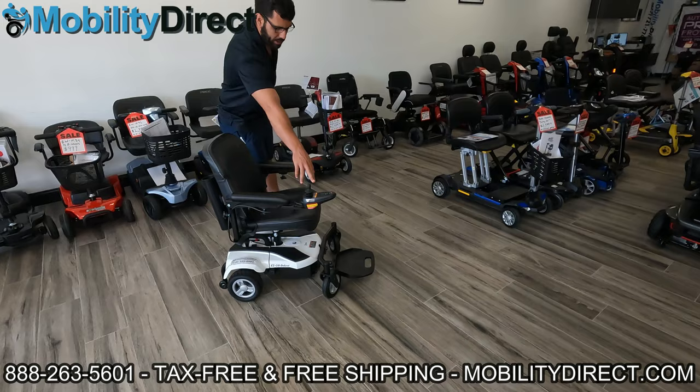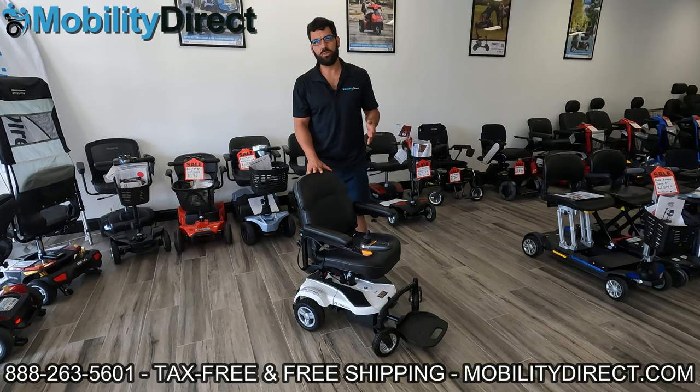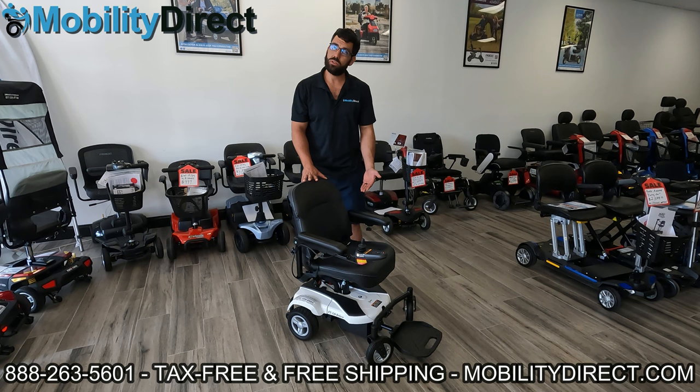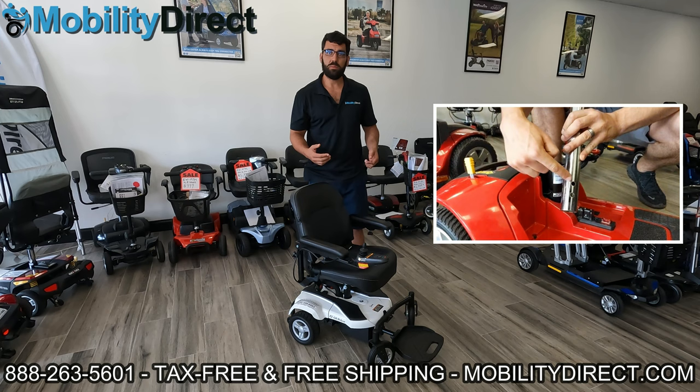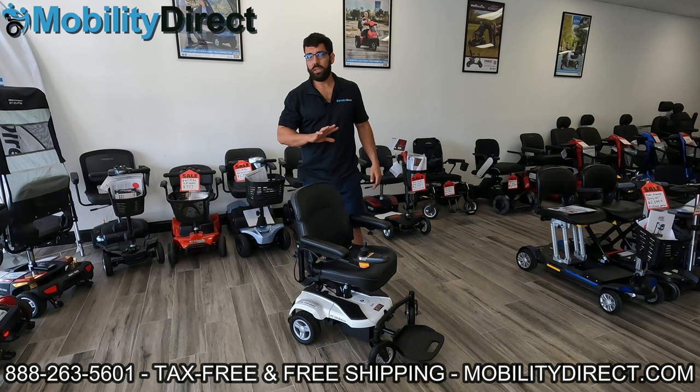There are probably a lot of other things that can go wrong with your seat, especially with armrests. We have a whole other video on how to troubleshoot and adjust your armrests. We also have videos showing how to adjust the height of your seat — there's usually a bolt or a quick-release pin that goes through the female seat post, and you can raise it up and put that pin or bolt through a different hole to change the height at which the seat post rests.